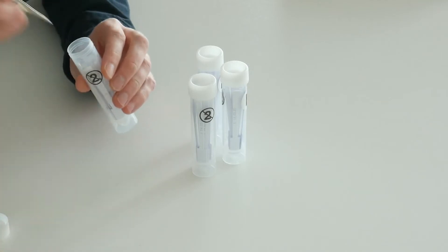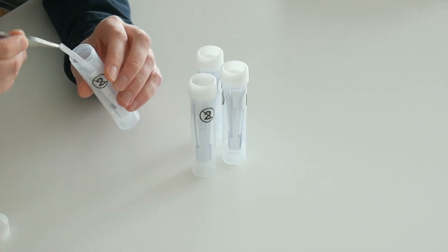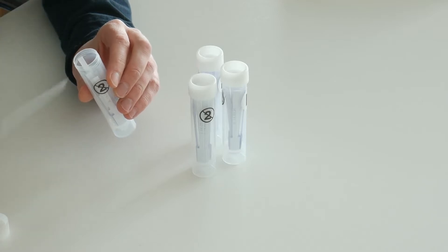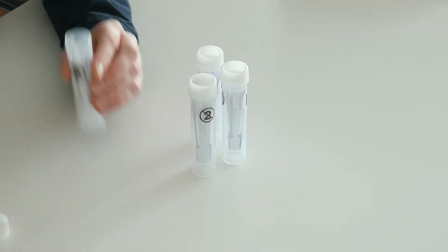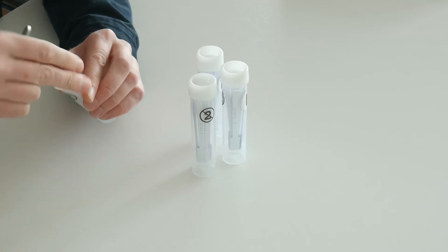They are made of cellulose paper, so it is a very simple but effective manner to do a complete taste test.